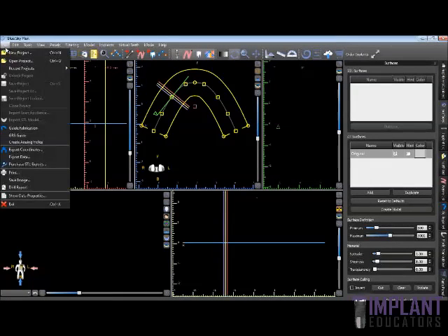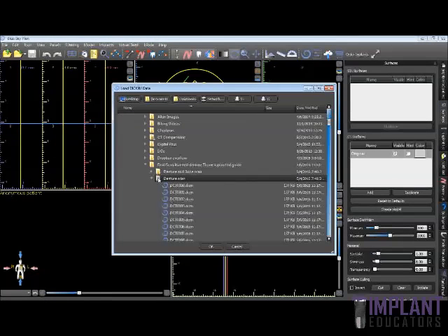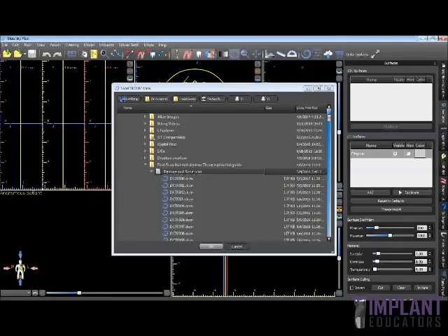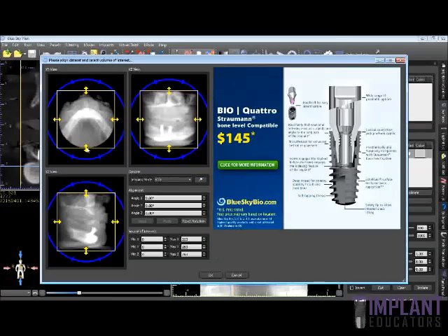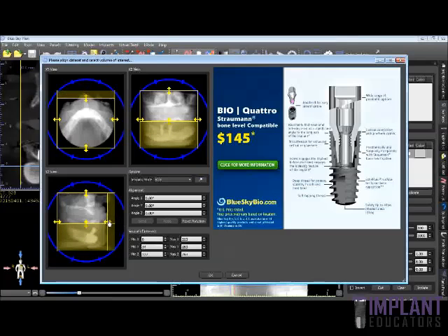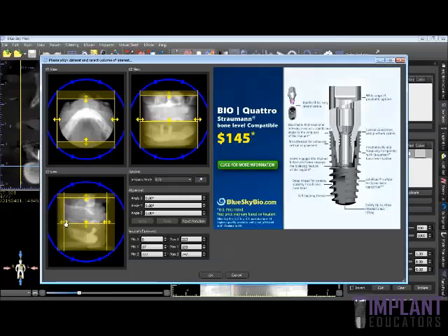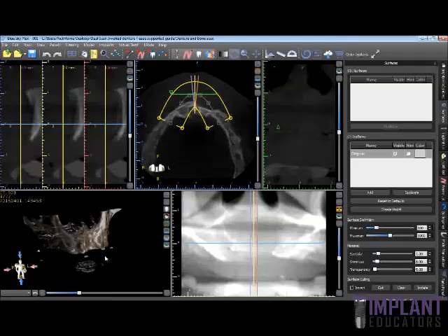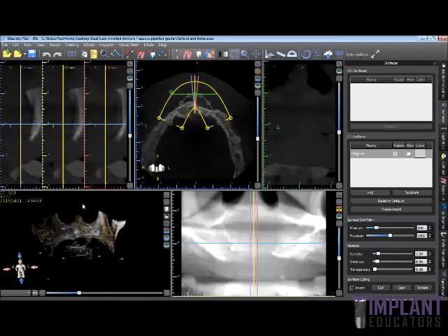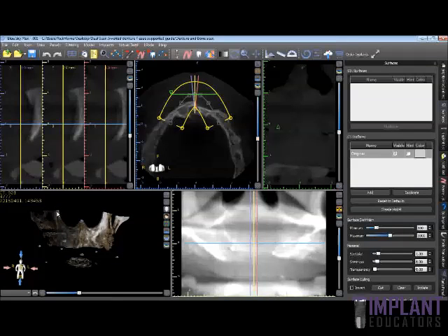The first step is to create a new project in the Blue Sky Plan software. We're going to select and open the denture and bone scan first, bring that into the software. It's going to ask you if this is the correct patient — click yes. We're then going to select our region of interest. We're only interested in the maxilla, but remember we scanned this patient with the denture in place with the fiducial markers, so make sure you capture the entire denture in this region of interest, including the fiducial markers. In the 3D rendering we have the bone scan with the fiducial markers. Because of volumetric averaging, the denture won't show up very well in this scan — it will show up if you scan the denture by itself in most CBCTs.